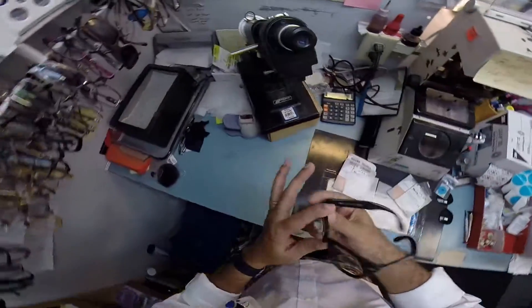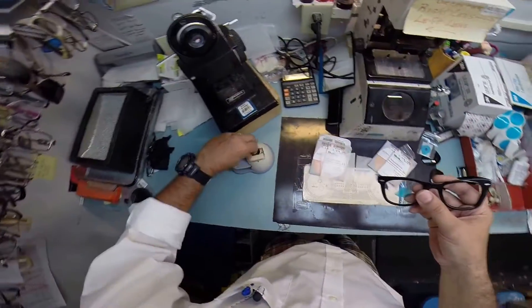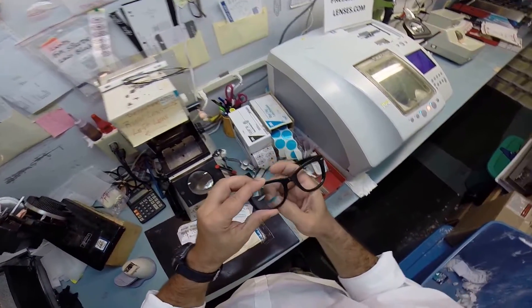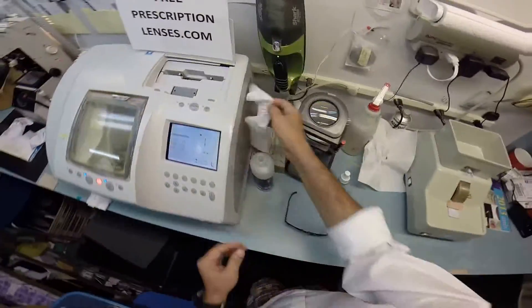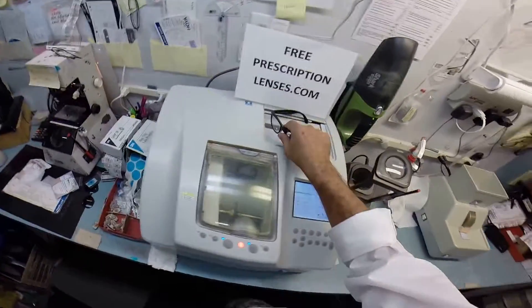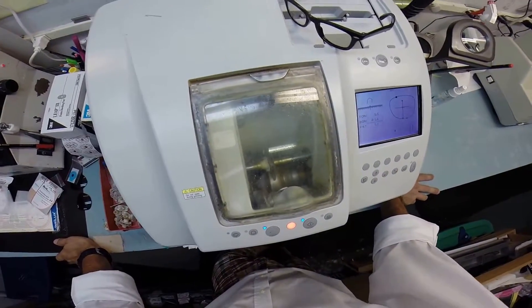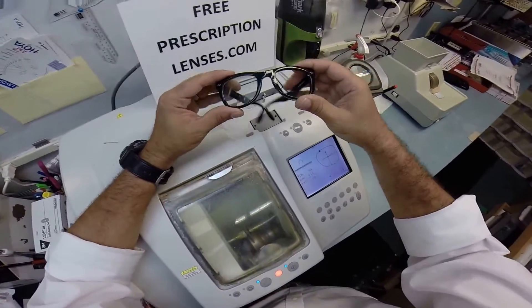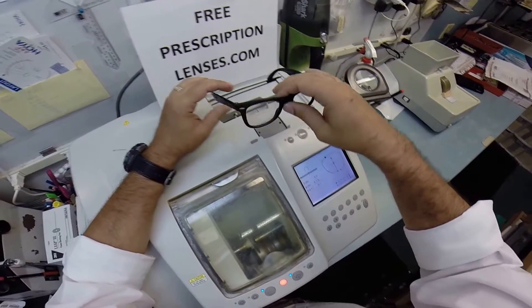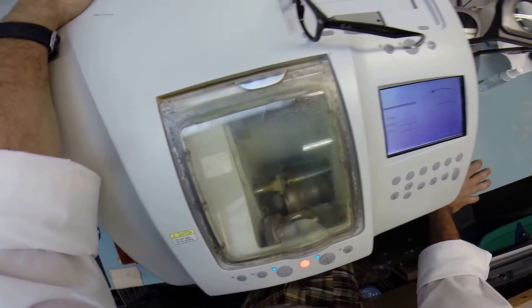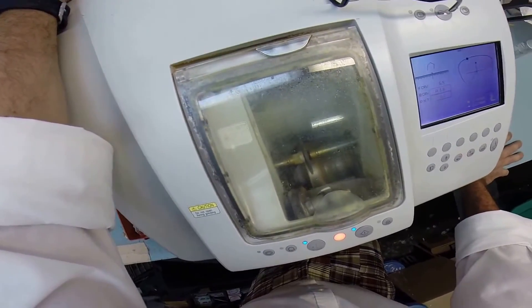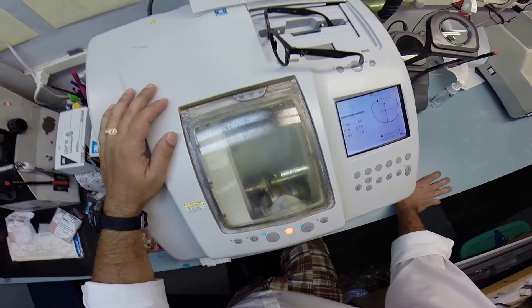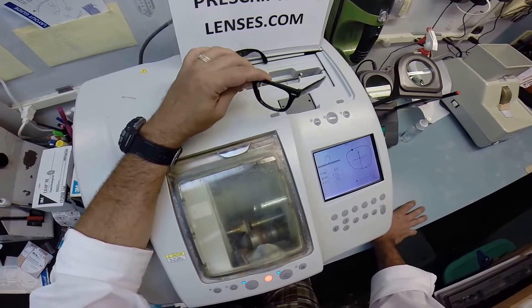I apologize for my bad humor. I love what I do so I joke around a lot. I do take my work very seriously. I just removed the block from your lens and this blue sticker. I just want to go ahead and clean your lens - actually I'll do that at the very end since I got to clean the other one too. I do enjoy what I do so I joke around. I take my work very seriously but I do not take myself very seriously. When you're as good as I am you can afford to joke around. When you don't know what you're doing, you better remain professional. This is a piece of cake.